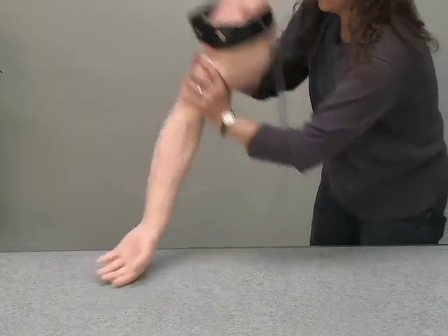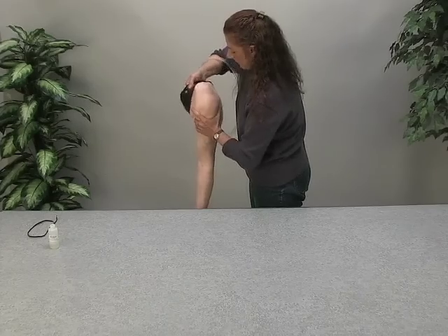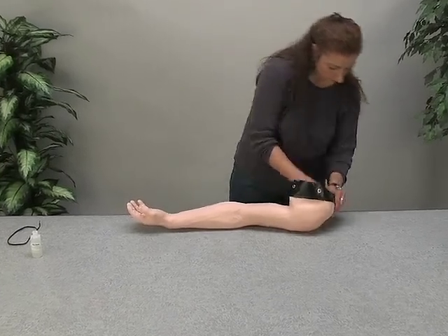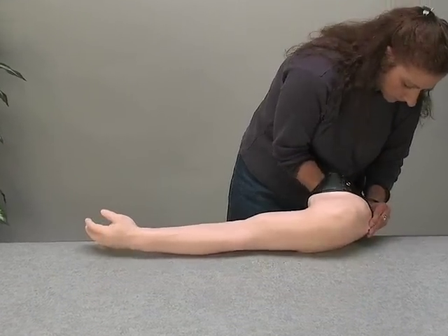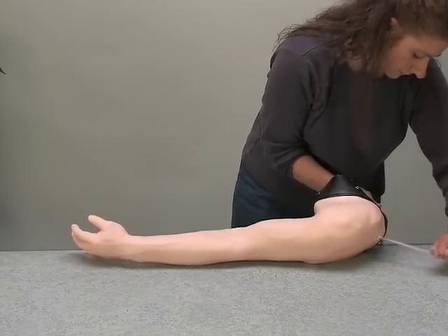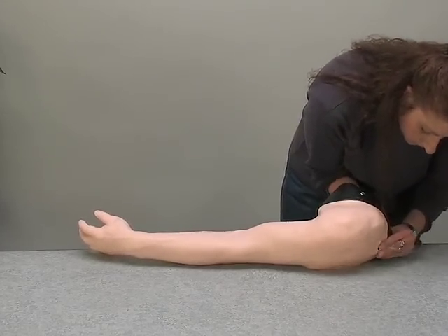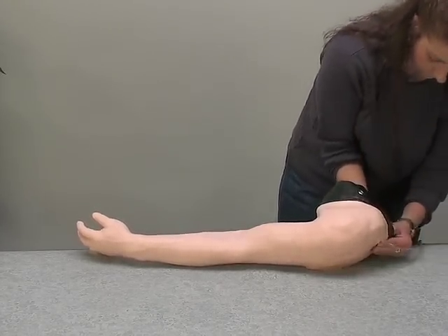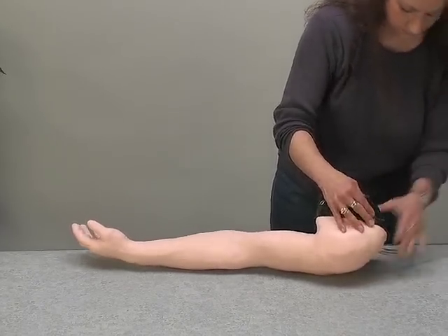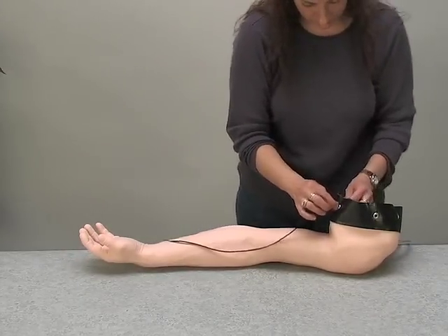Massage the shoulder until it fits properly with the skin. Feed the inlet-outlet tubing through the skin to the outside. Adjust the skin over the upper shoulder and re-tie the string to hold it in position.